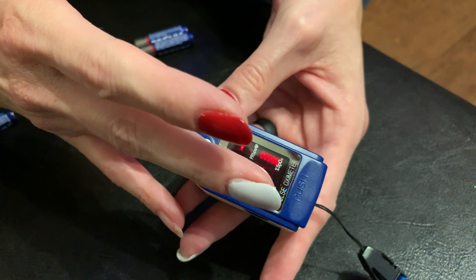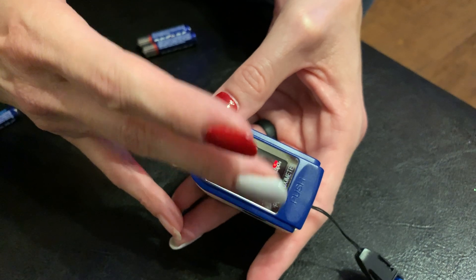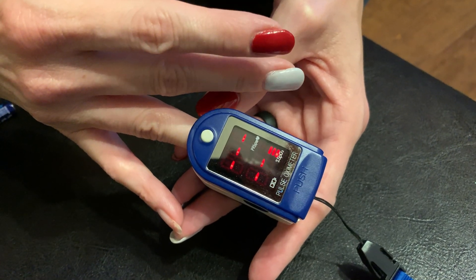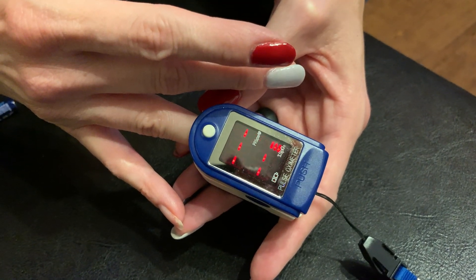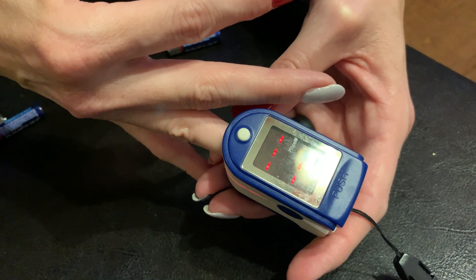If we had to take that off any one of her fingers, I don't really know how we would do that in the back of the ambulance, because it takes her about 10 or 15 minutes to take it off at home, and that's soaking her fingers. So that's an interesting problem we may run into. Just experimenting a little bit and I hope you find this useful.